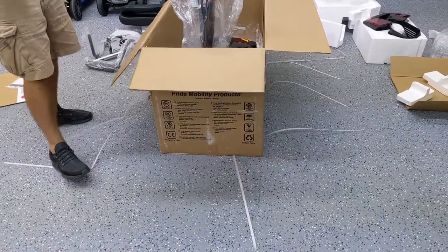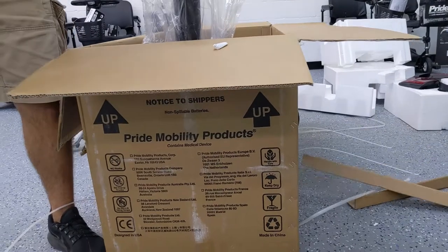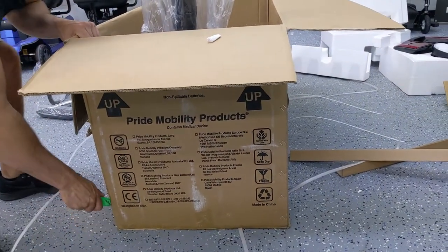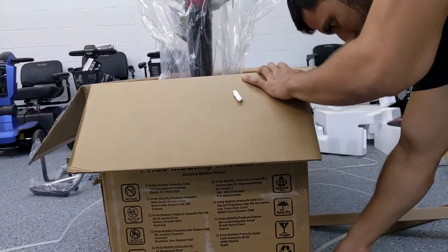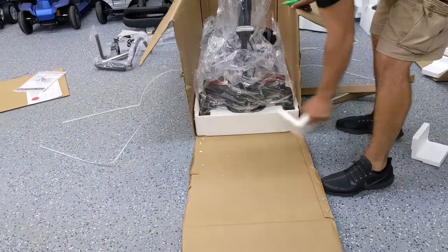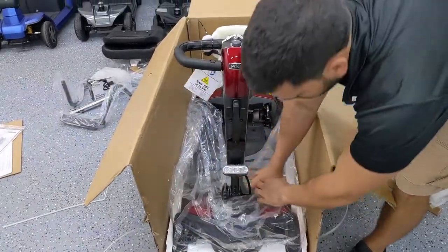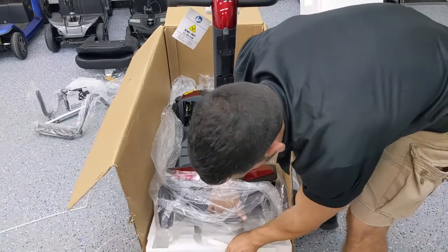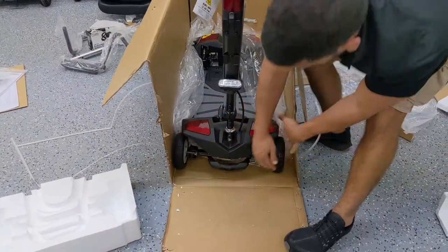I'm going to get my box cutter and carefully first remove the corners — they're just long pieces of 90-degree angled cardboard to protect the edges from caving in. If you don't take them out, it's harder to cut the edges. So I take them out and then walk my blade up carefully on each side. Now the front of the box is completely cut out. If you've got the hand strength, I'd recommend lifting the front and taking out this piece of styrofoam. I'm going to place the plastic under the front wheels so it doesn't get caught as I wheel the scooter out.